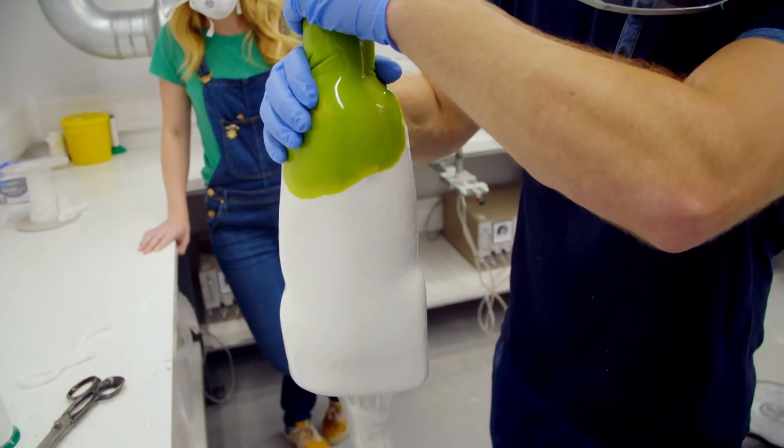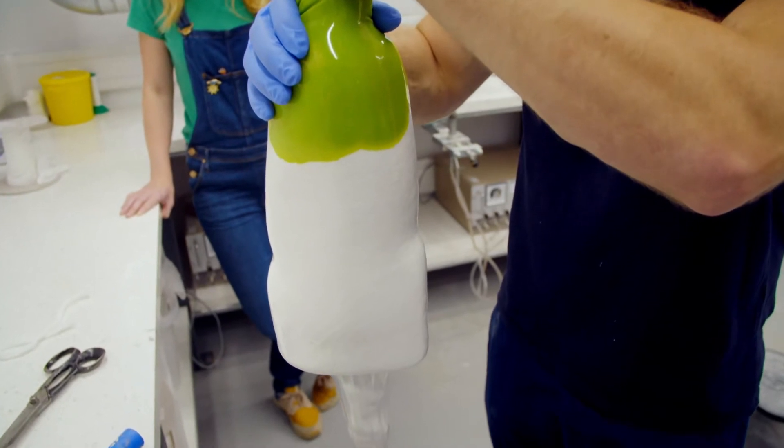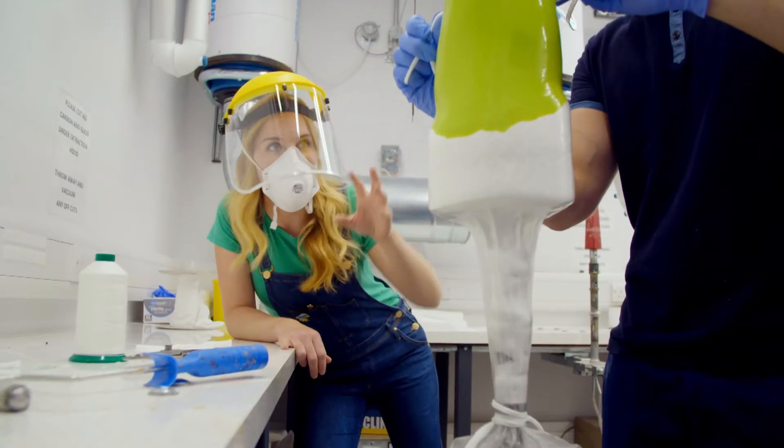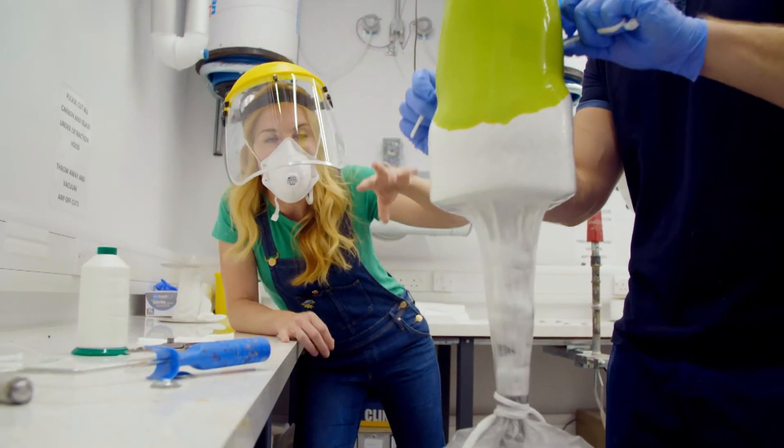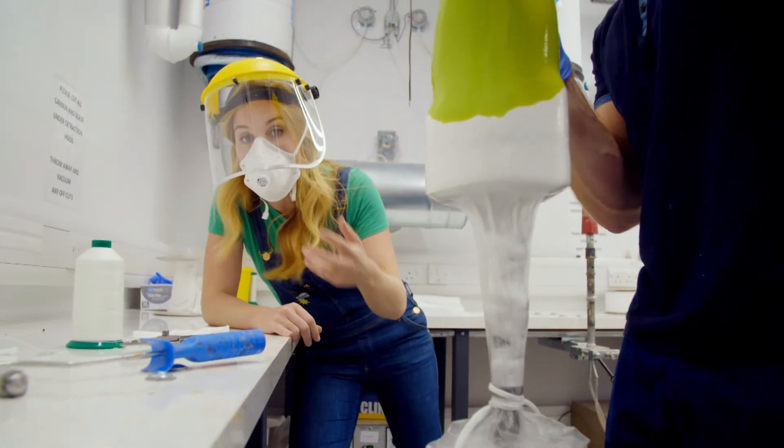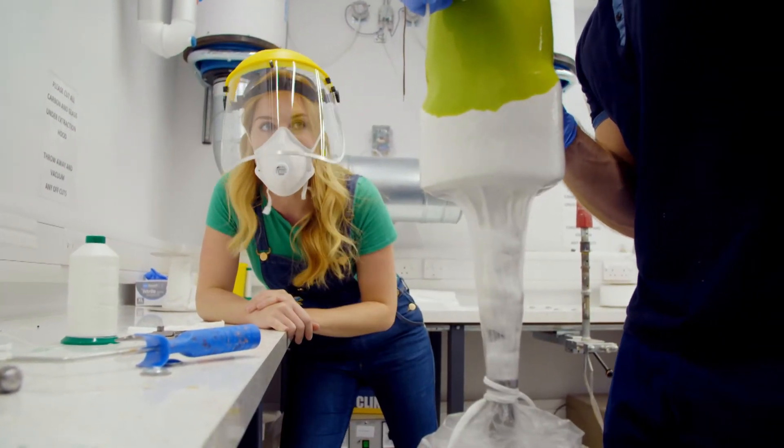It looks brilliant, doesn't it? The resin is running underneath the bag and it's mixing with the layers of nylon, glass fibre and carbon fibre.